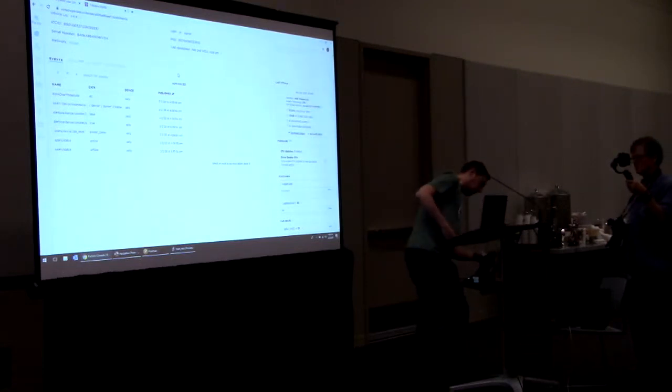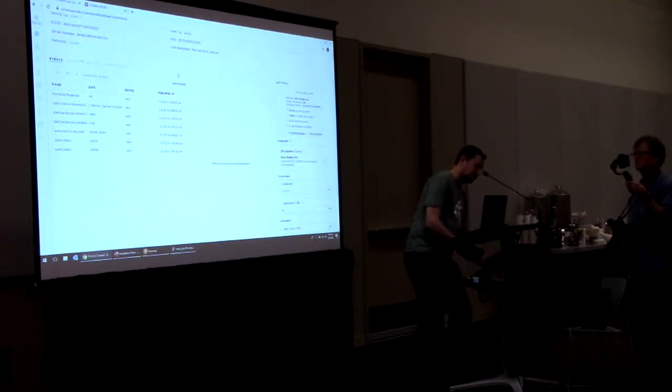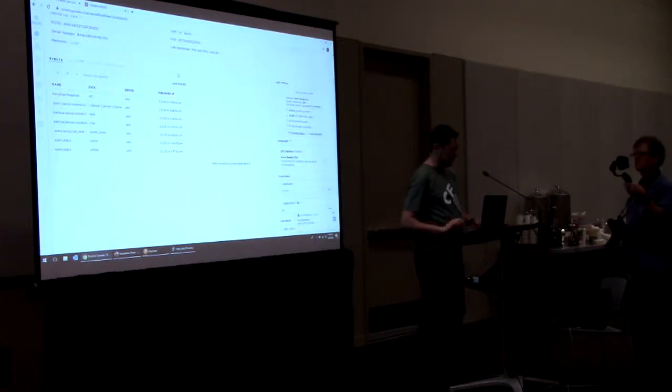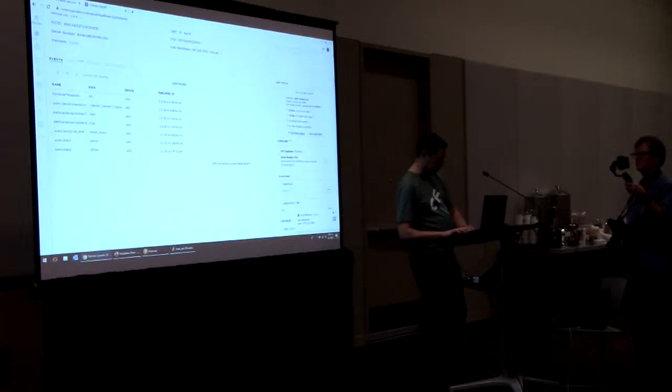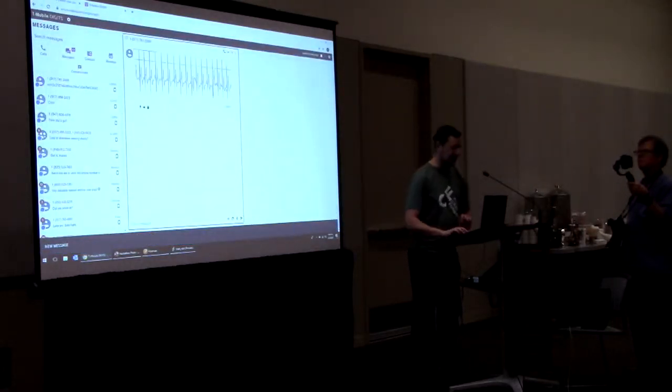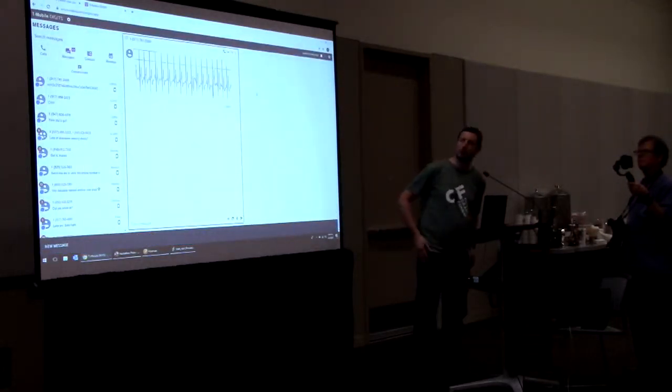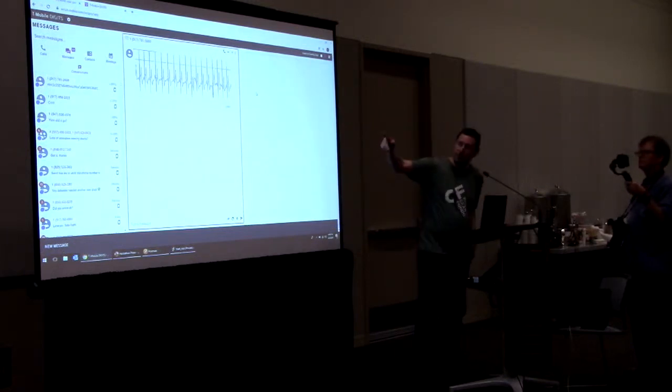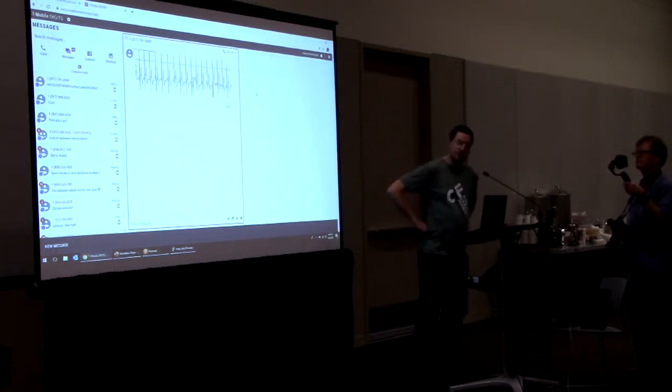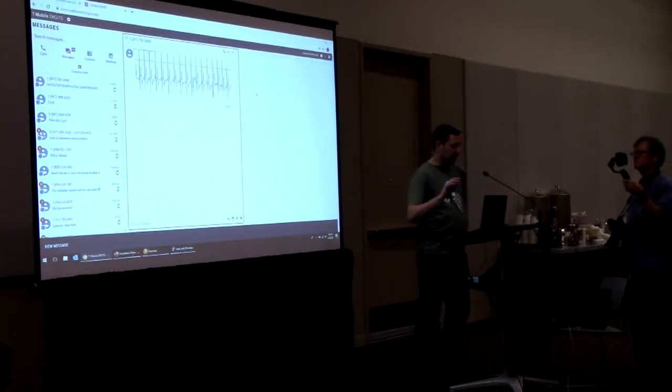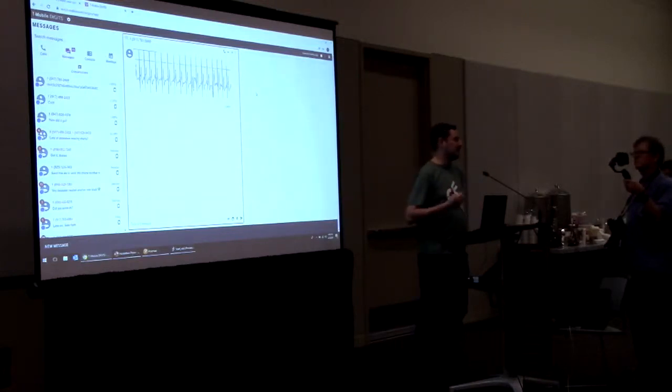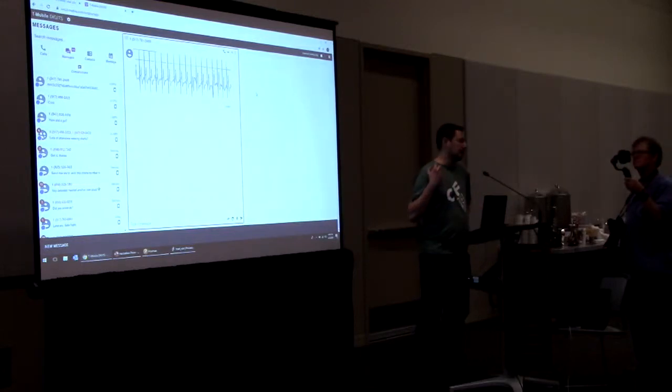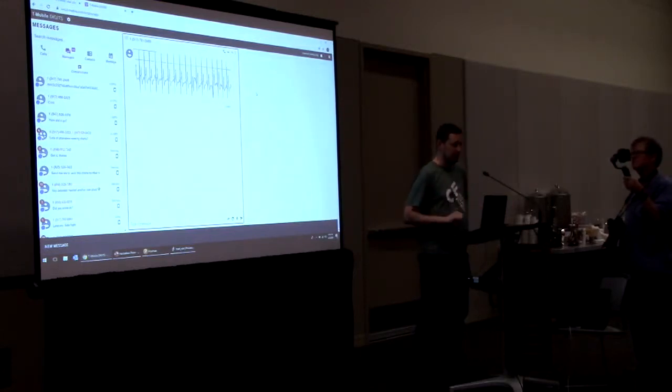That just hung up the call. Now, what's actually happened in the background is my mediation server is pulling together the last 30 seconds of my EKG, and it just sent a message, which I can pull up over here. This is actually right on my live phone. You can see that on here as well. The doctor can get some information here of what's actually going on in real time. I can continue. I can respond back to this, and it can escalate. It can go ring a bunch of people into a conference call. It can do logging up the state and all that.